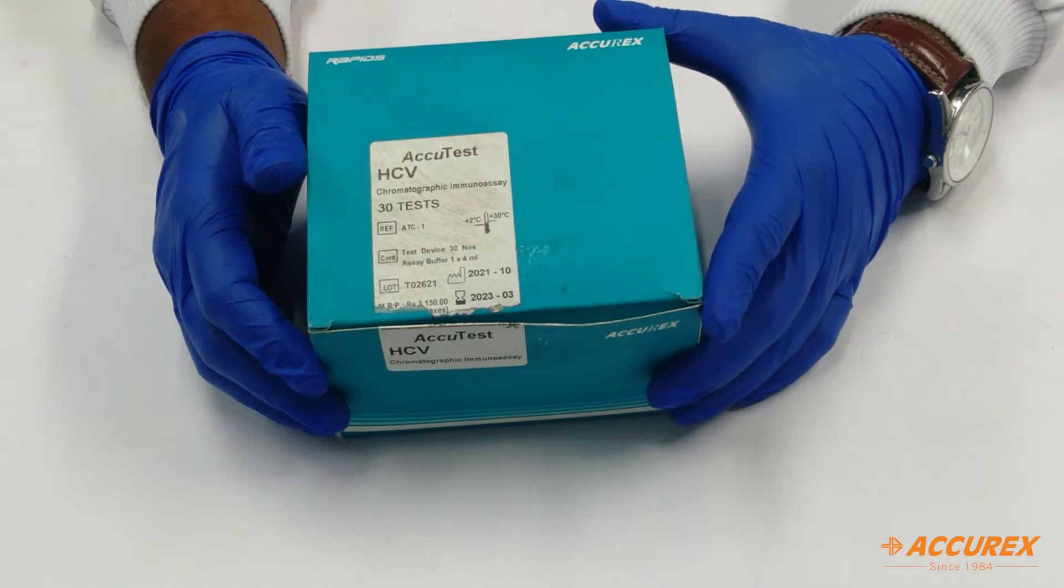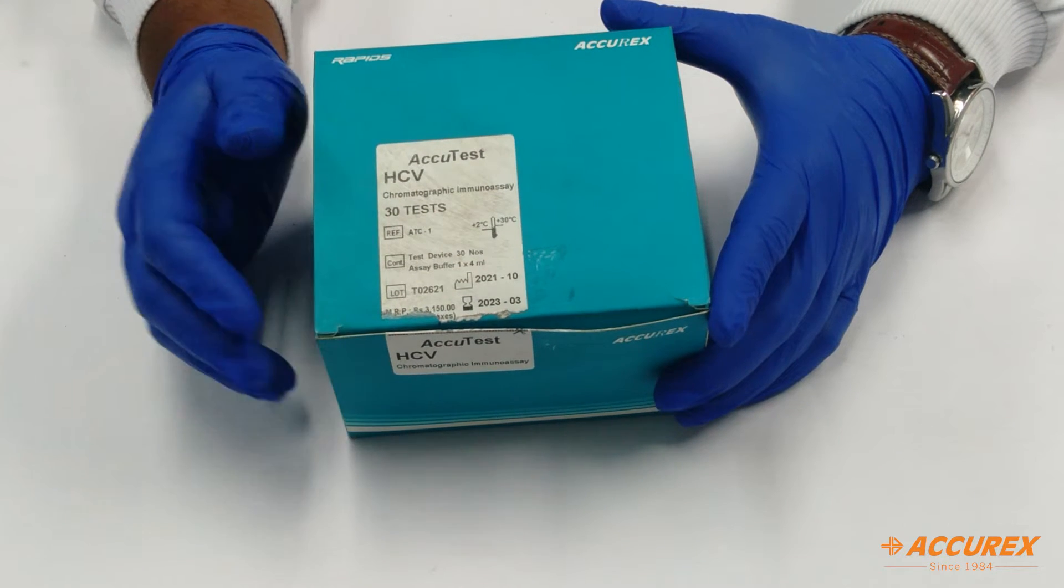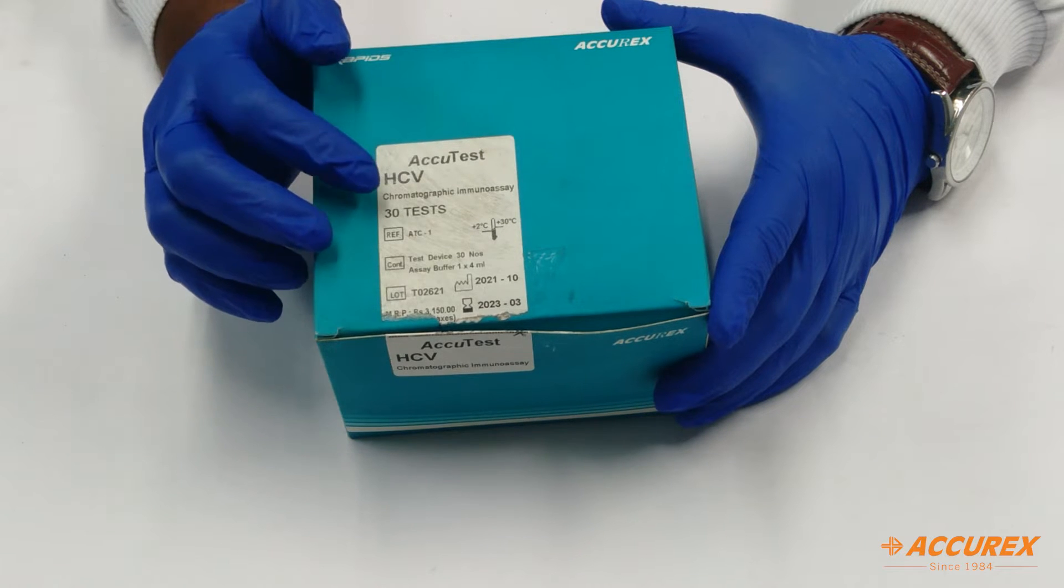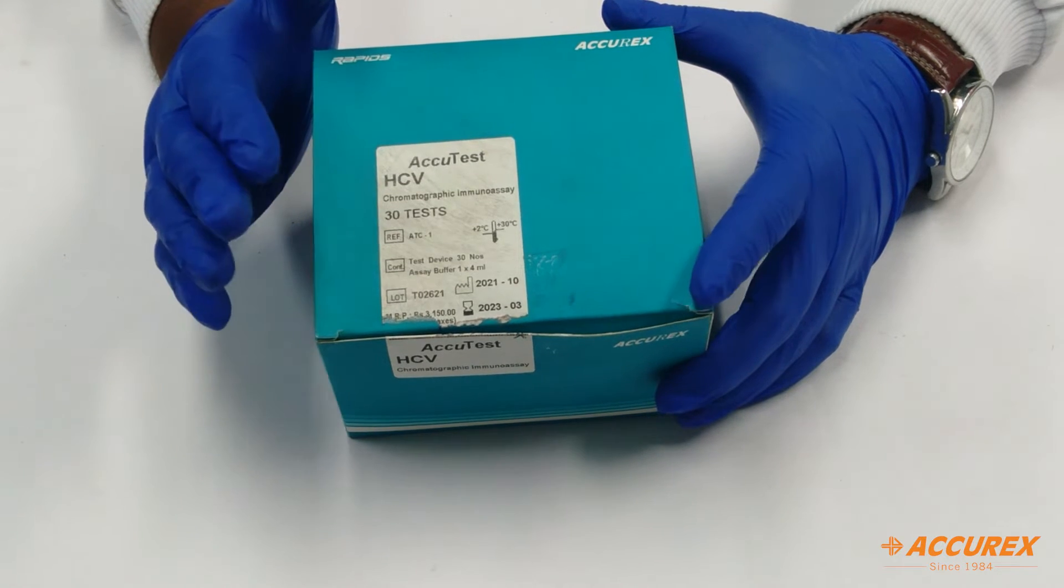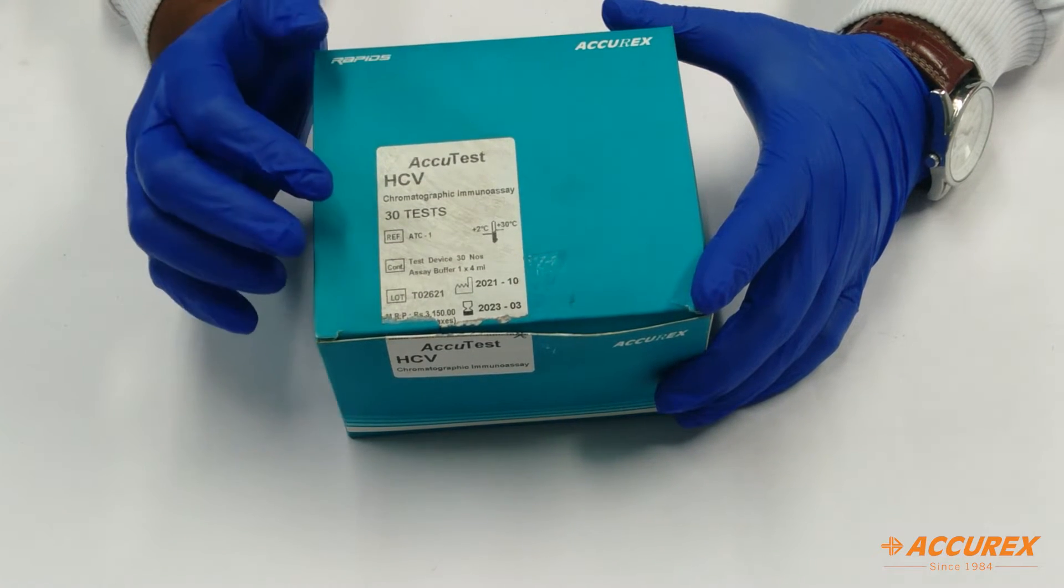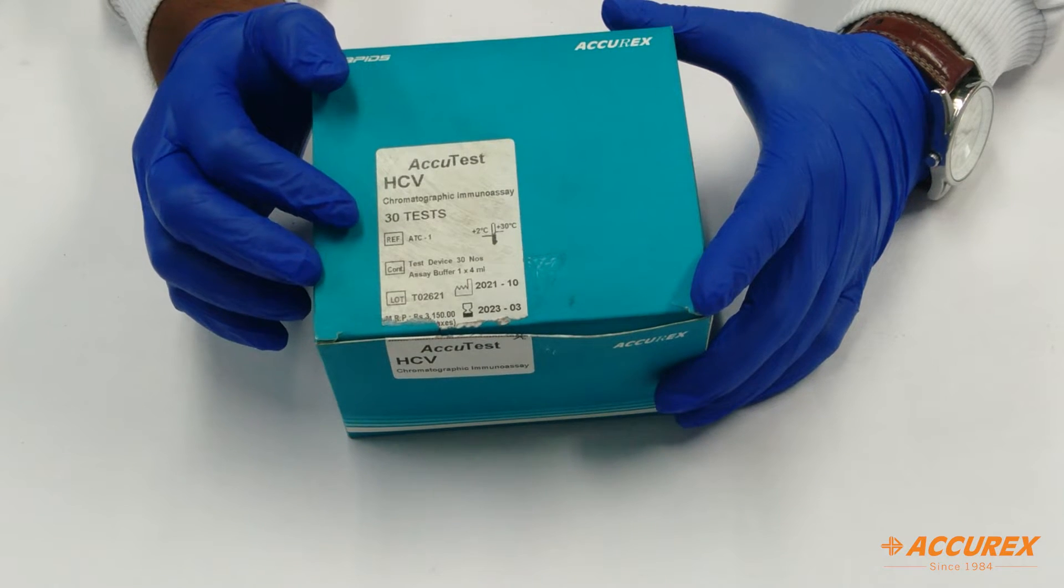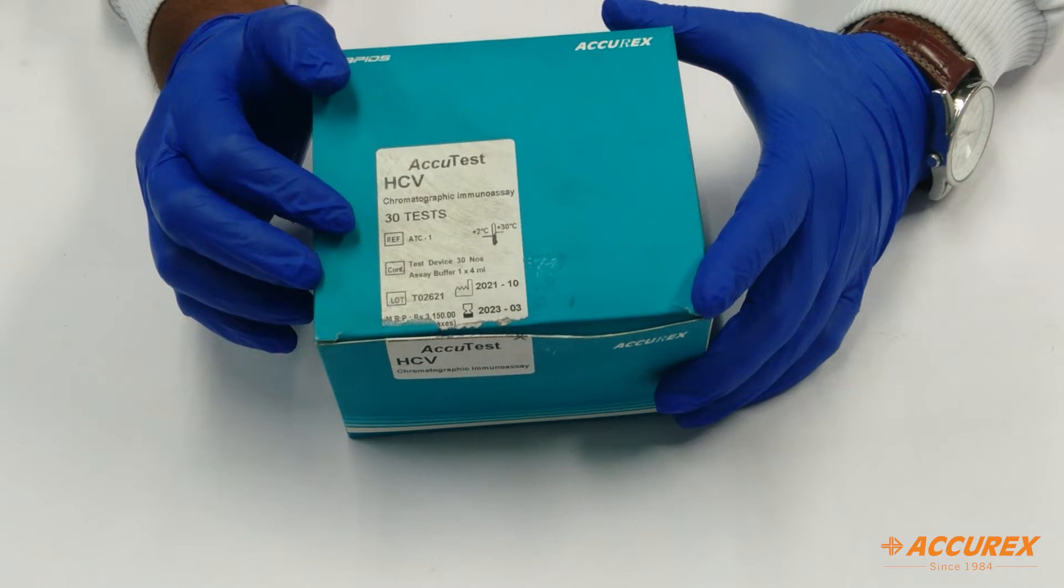Hello everyone, welcome to Accurex YouTube channel. Today we have the product called HCV. This is a 30 card test box used for the detection of Hepatitis C virus in human blood samples.